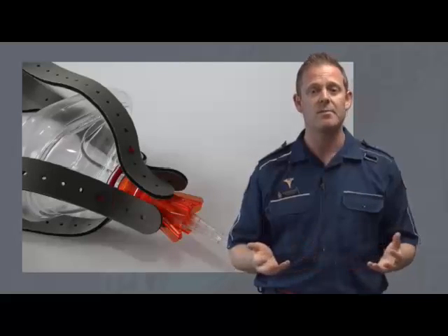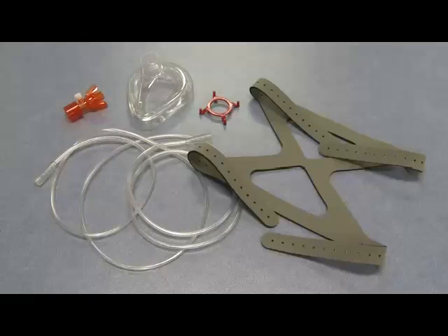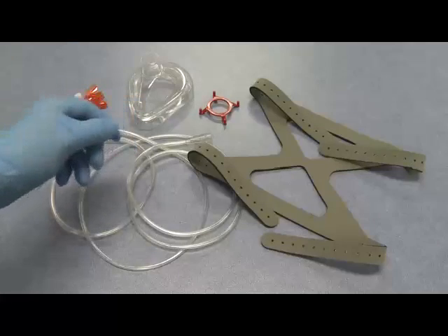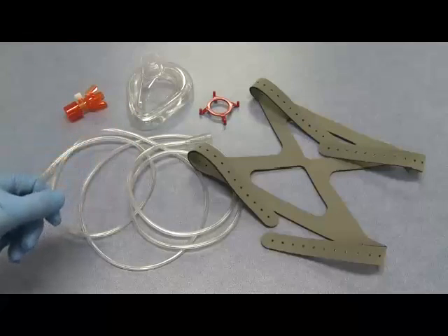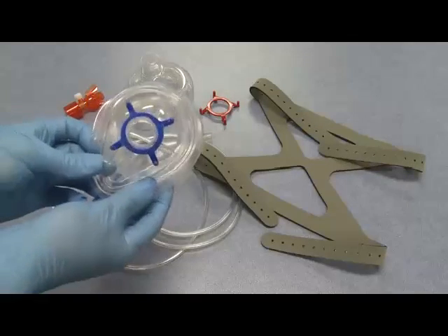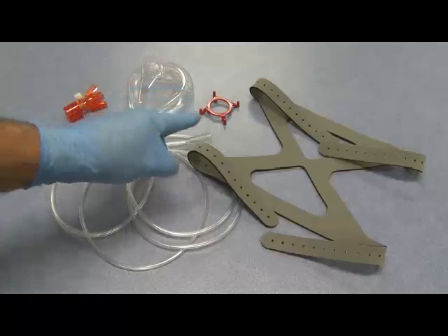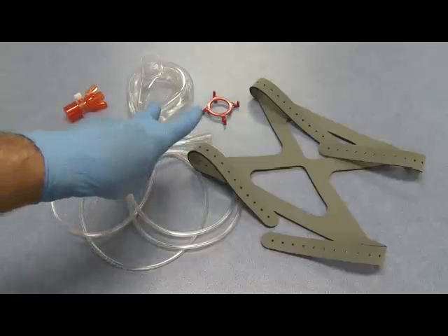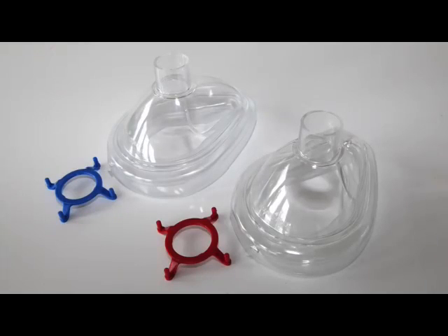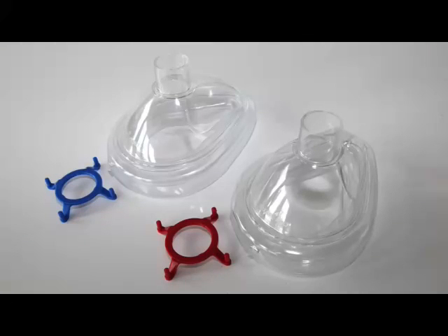Now let's look at the components. A size 4 air cushion mask — we do supply size 5 masks separately if required for larger adults. The harness hook ring: the size 4 mask is identified with a red harness hook ring, where a size 5 mask has a blue harness hook ring.